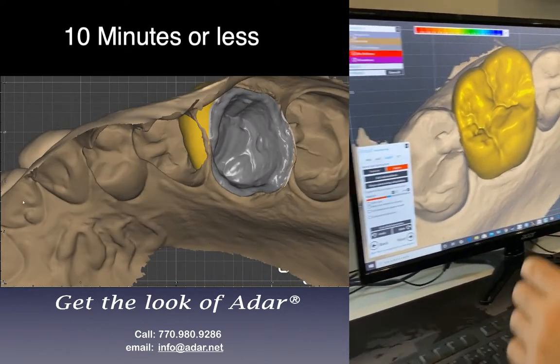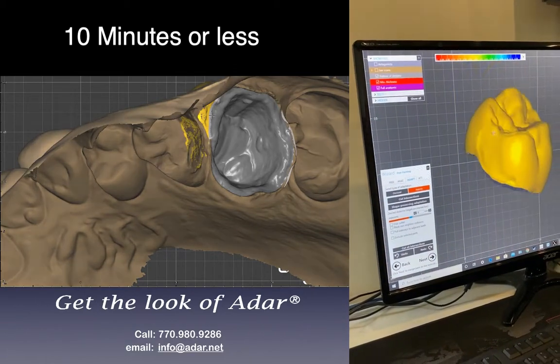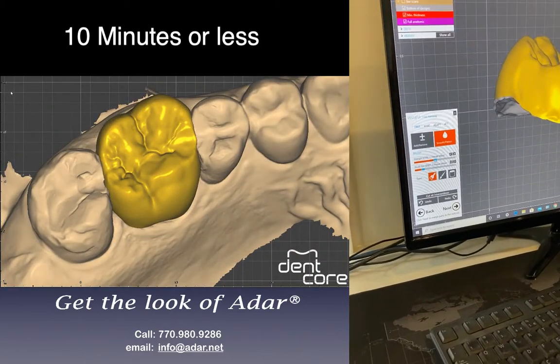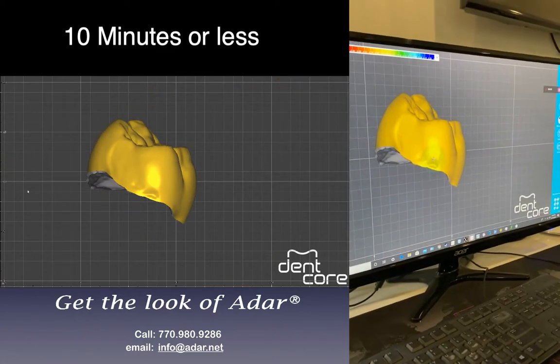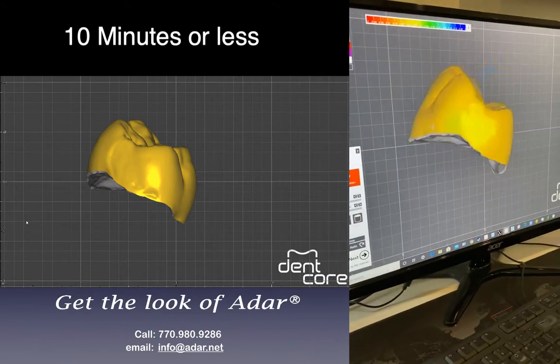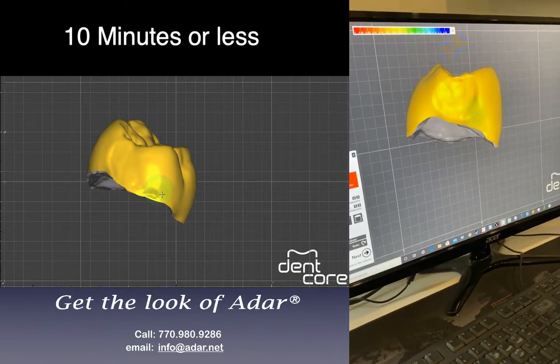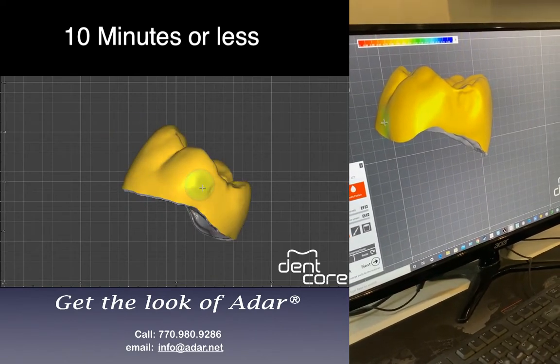Now I need to clean it up. I get rid of the jaw scan here and shut off the window. I take the freeform smooth button, lower the brush size, lower the strength, and use control-shift to cleanse it up faster. Do the margin first because I want to be efficient. I try to figure out how to do it fast — it's not about doing bad quality, it's just doing it fast. That's why I time myself.